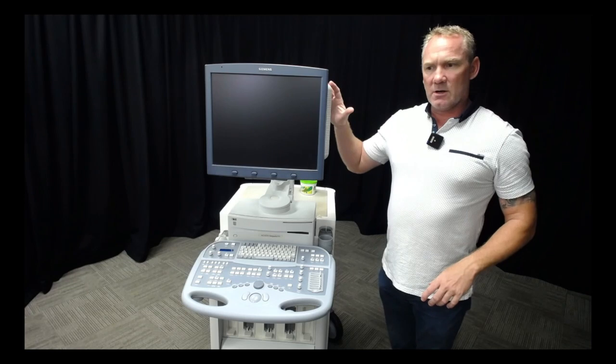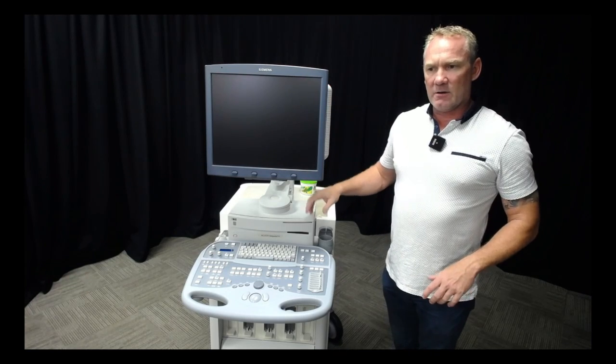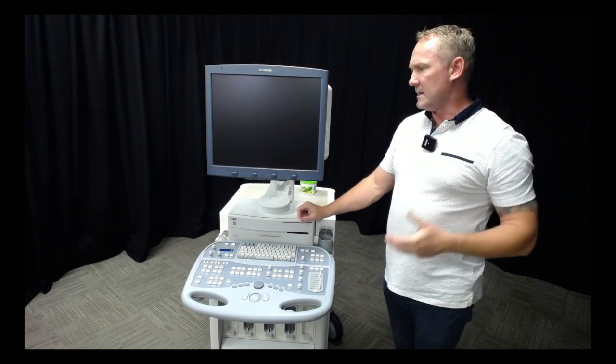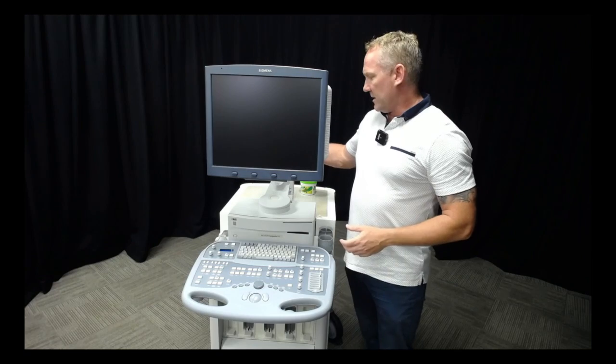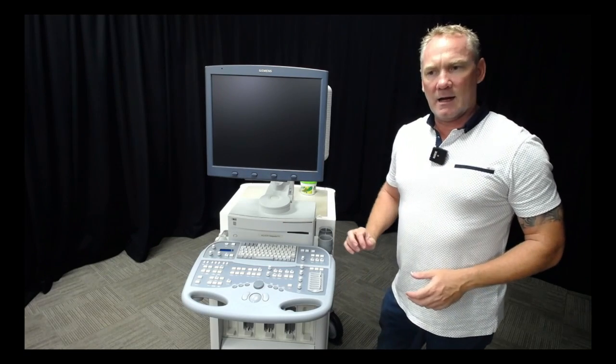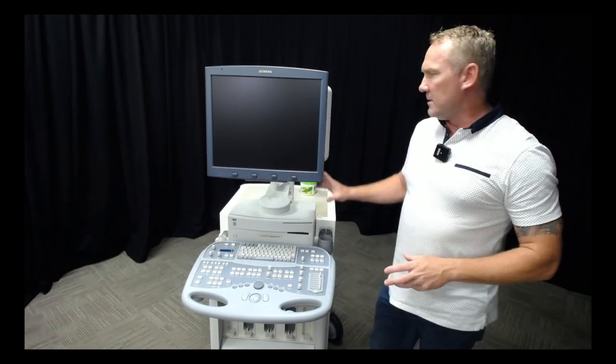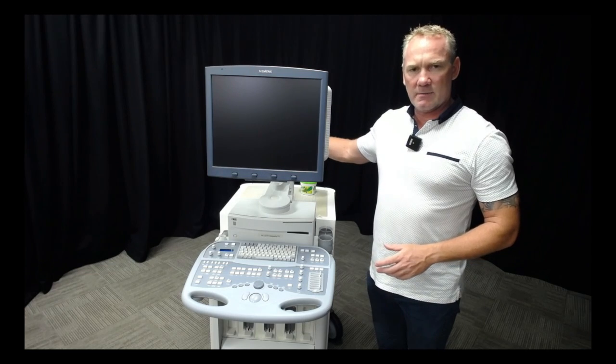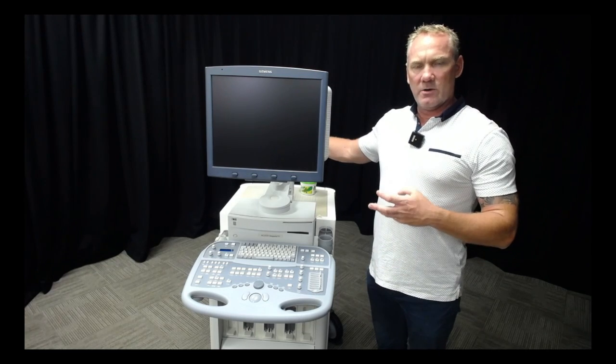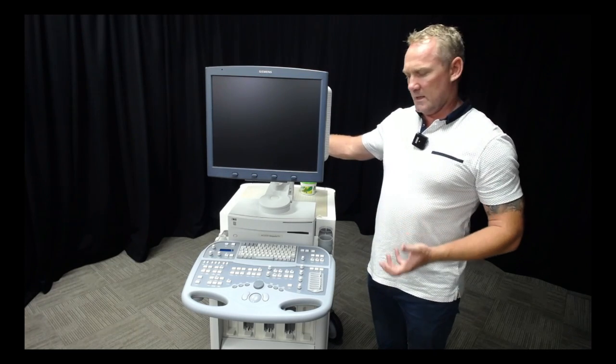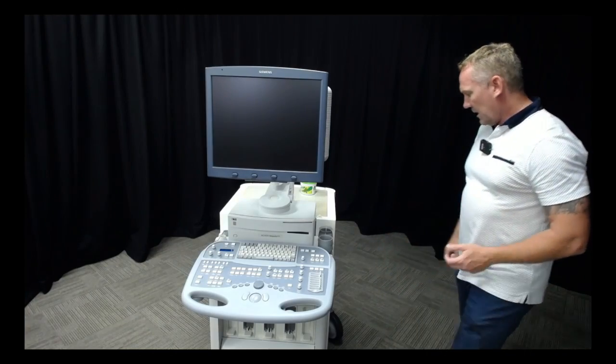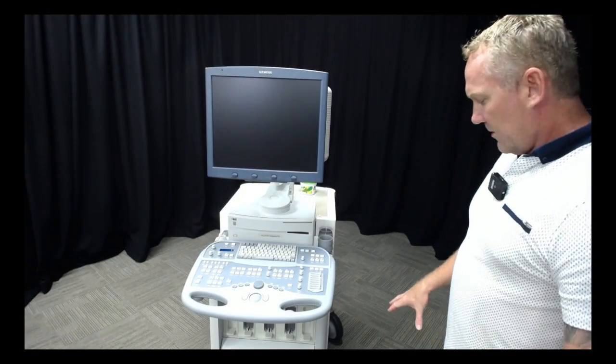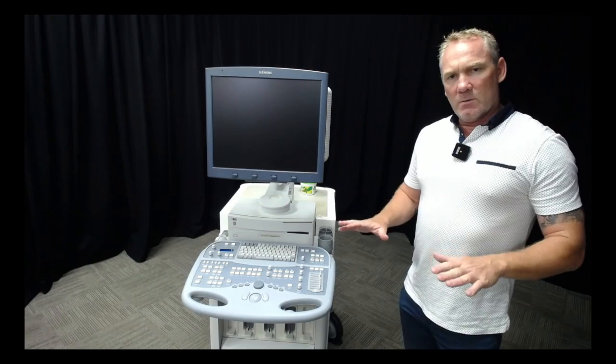We can see this monitor is slowly drifting down, not holding its height in place, and that needs tightening up at the arm. Some of these things can be done by tightening them ourselves, other times it's a non-adjustable part and needs to be replaced.